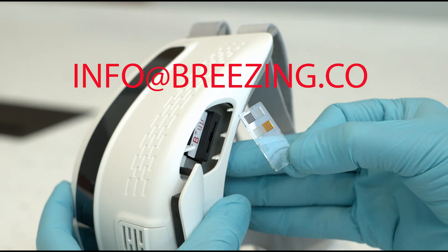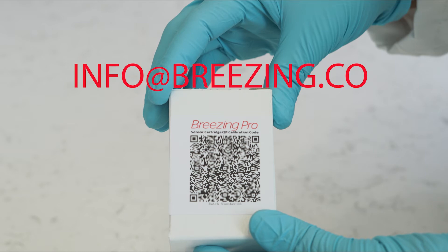If an error message appears, it is because the sensor was inserted incorrectly, may have been used, or left exposed to air for too long, or there is no sensor in the chamber. Open the sensor chamber cover, press the cartridge to release, flip and reinsert the sensor or insert a new freshly opened sensor, close the chamber cover, and tap Check Sensor again. If the error persists, take a picture of your sensor and QR code and send it to info at breezing.co.